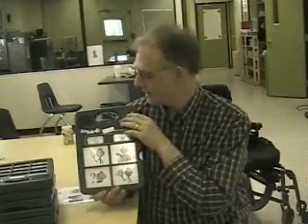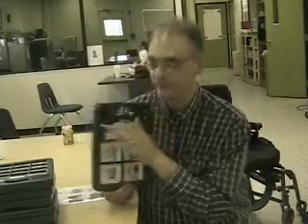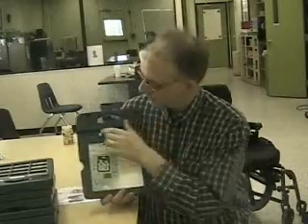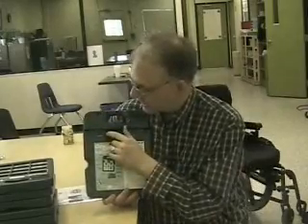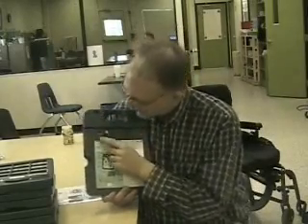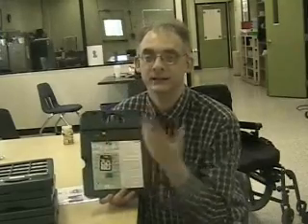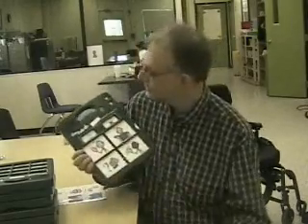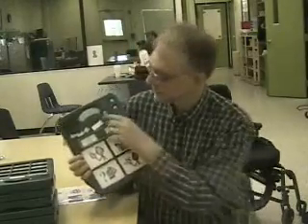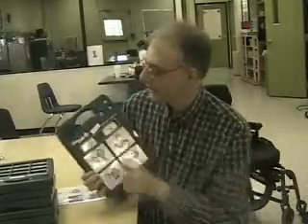As I said, I have the levels here. I got volume control right here on the front. On the back, we have the on-off switch right here. And then we have a record button. And then you have this thing that's really hard to get to. You need a paper clip or something called erase that'll just erase the whole thing. And those are just the basic components of all of the GoTalks. The microphone is right here, so when you record your voice or record a message, it'll appear right here.